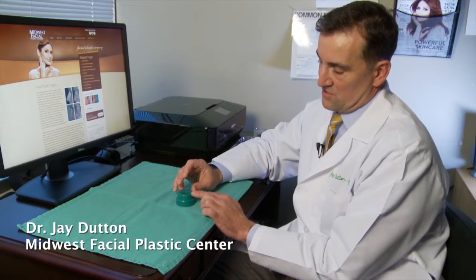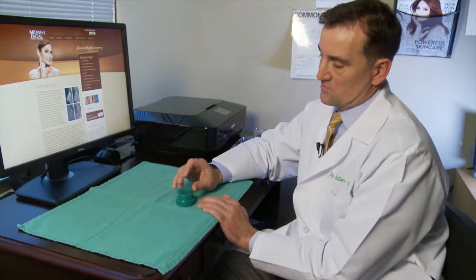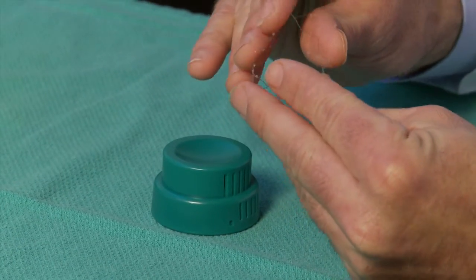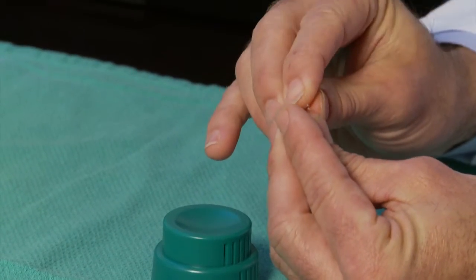This is made of the same material that creates an absorbable suture. So instead of putting packing in the nose, we put this small stent into the sinus cavity.